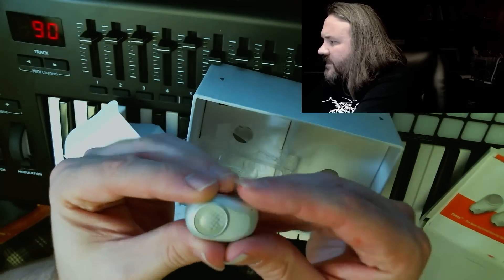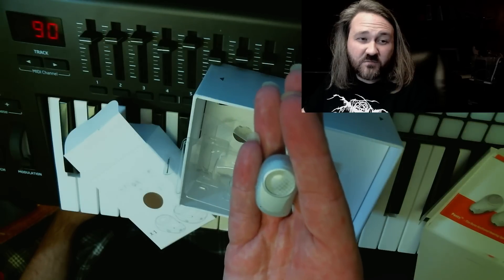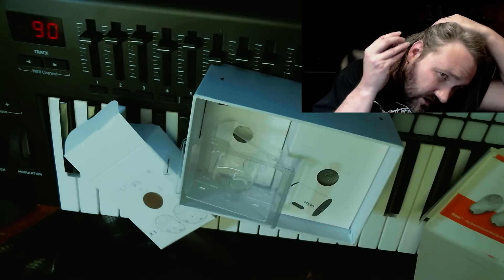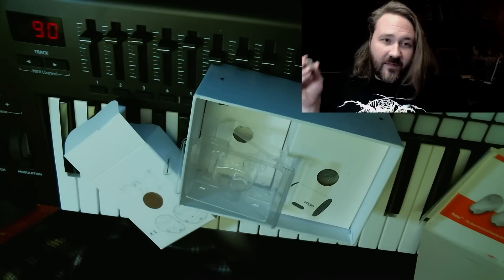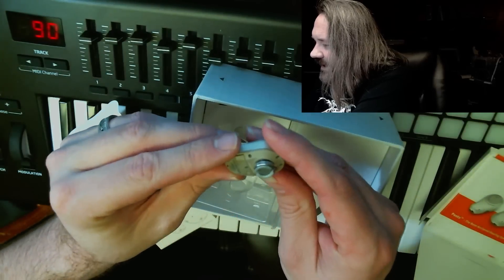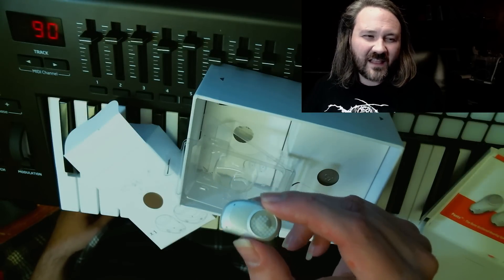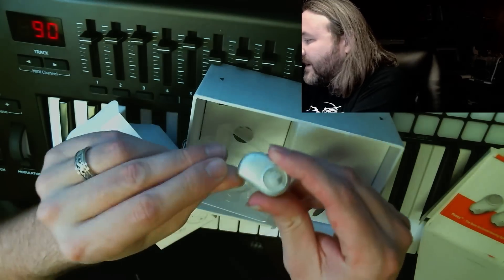Out it comes — not big at all. In my hand you can see it's quite a small device, not very heavy. On the back there's a little clip and magnet. What that does is it will actually clip onto my head and face downward, and vibrate the abutment, which will act as a transducer to produce sound in my skull. They've really designed this to be very small and inconspicuous, which I actually don't care about at all — I don't care if there's some kind of stigma attached to the fact that I can't hear.